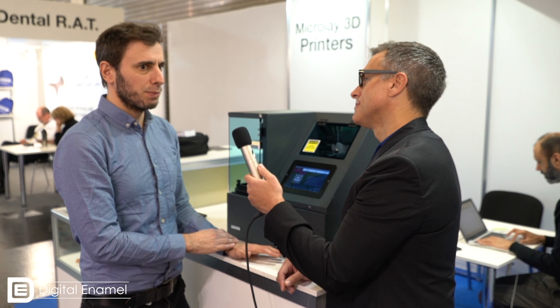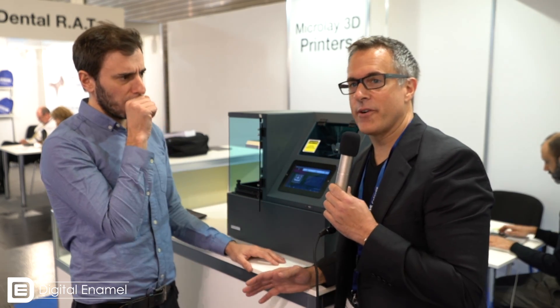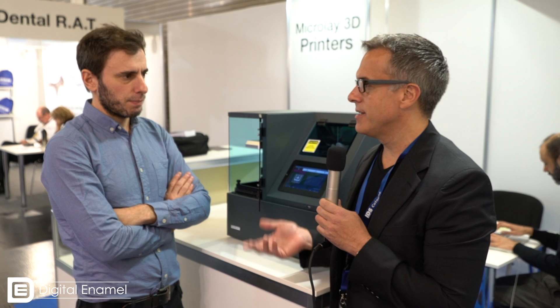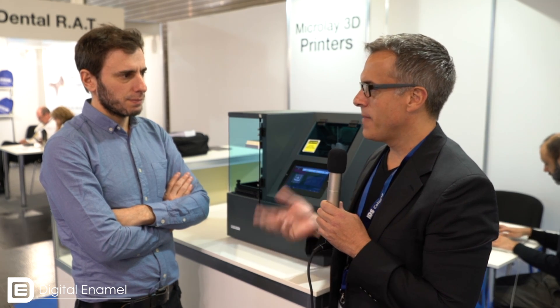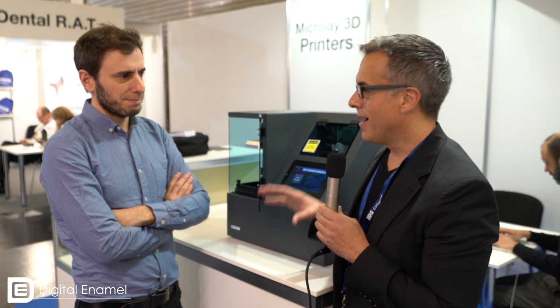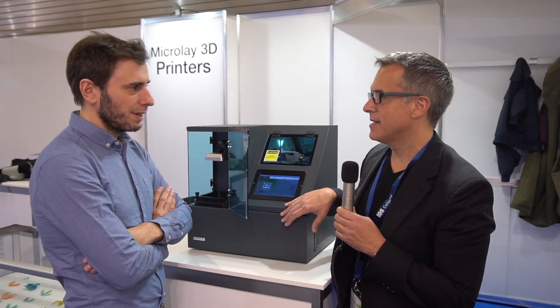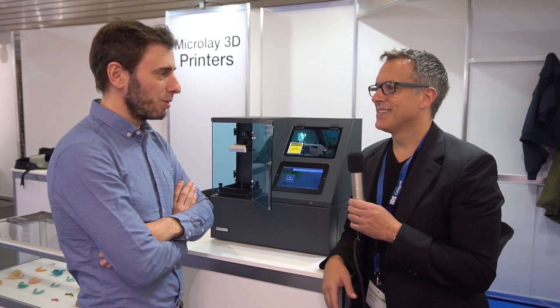I'm quite surprised that there are so many new materials for 3D printers. There are quite a few. One thing that Jonathan was talking about is there's a company in the U.S. called MakerJuice, which makes a resin that's about $50 per liter. Do you have those MakerJuice profiles yet? Not yet, but we will.